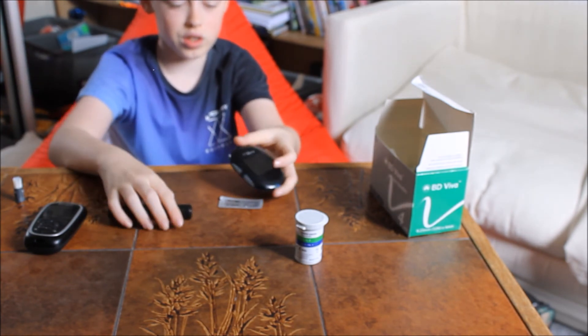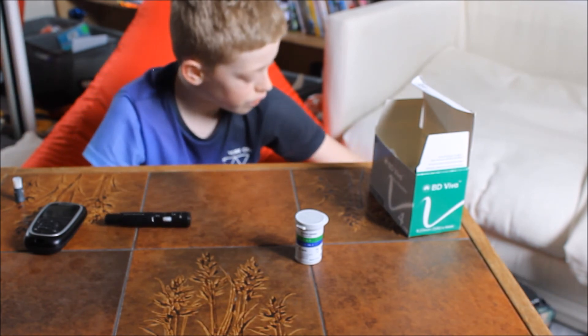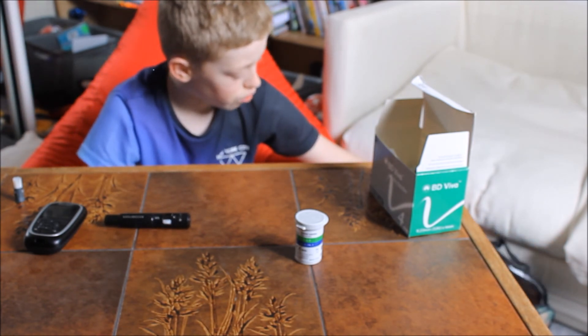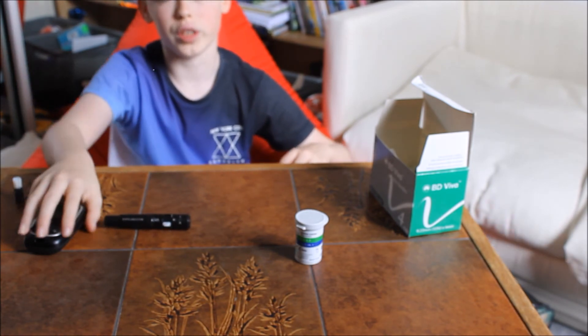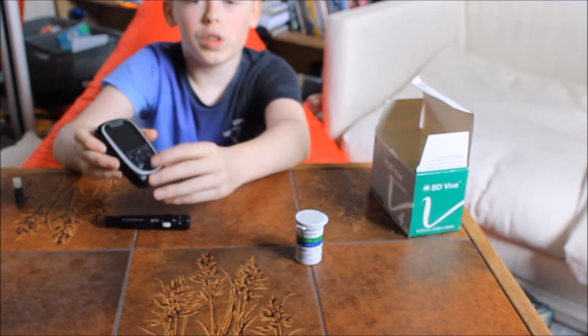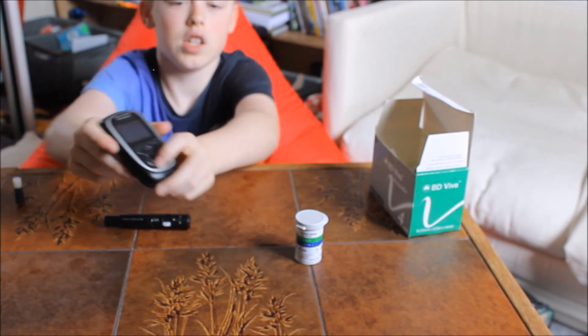When I've usually done it, it's usually around 0.1, which is good. When you do ketones, you just need to know what levels you have to be in between. Also with this, the way to turn it on is you press this button here to turn it on. Off, off, off, off, and on.